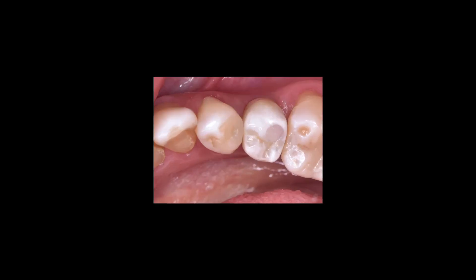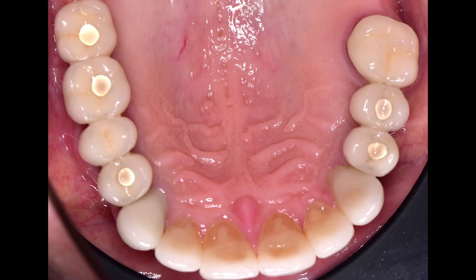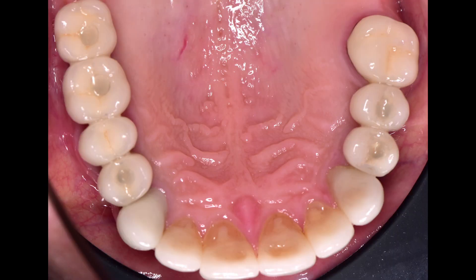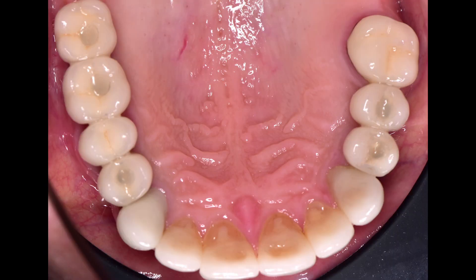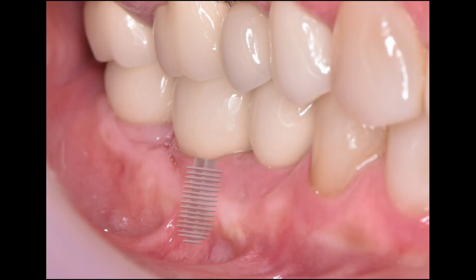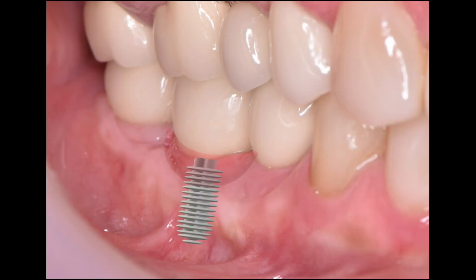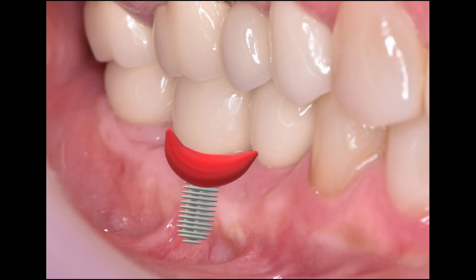Hi. To create this video, we were prompted by the opinion that the restoration crown with shaft screw fixation does not have leak tightness, which means a higher risk of peri-implantitis. We decided to check this myth.